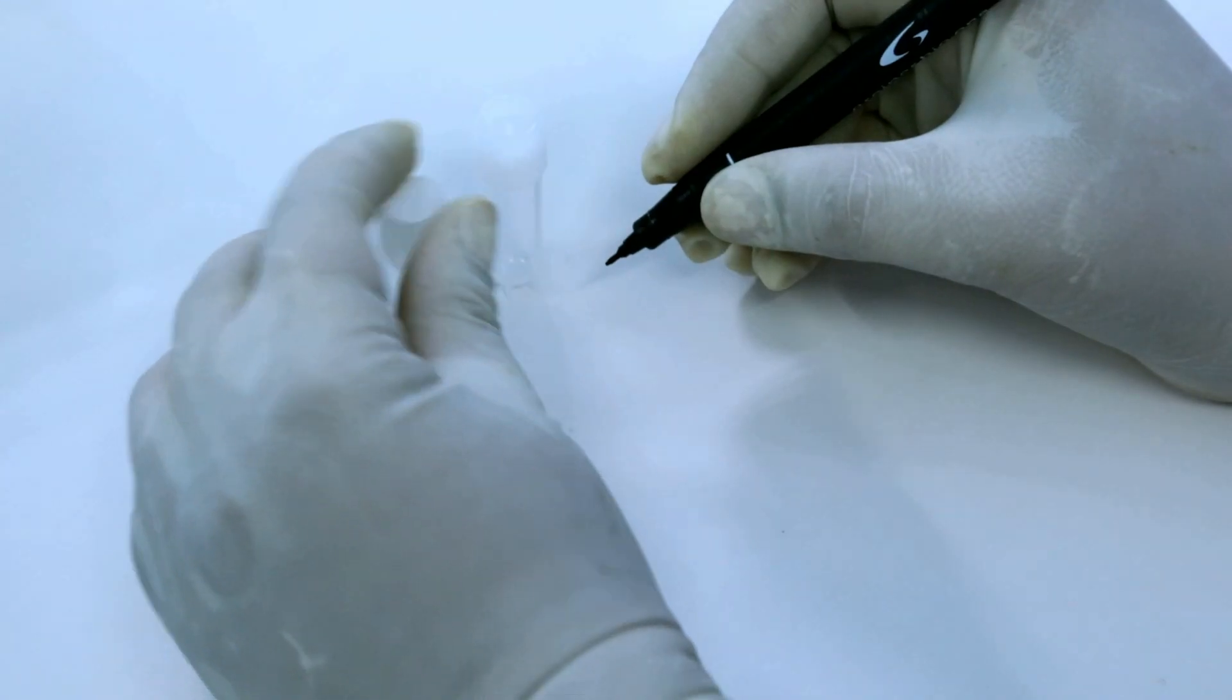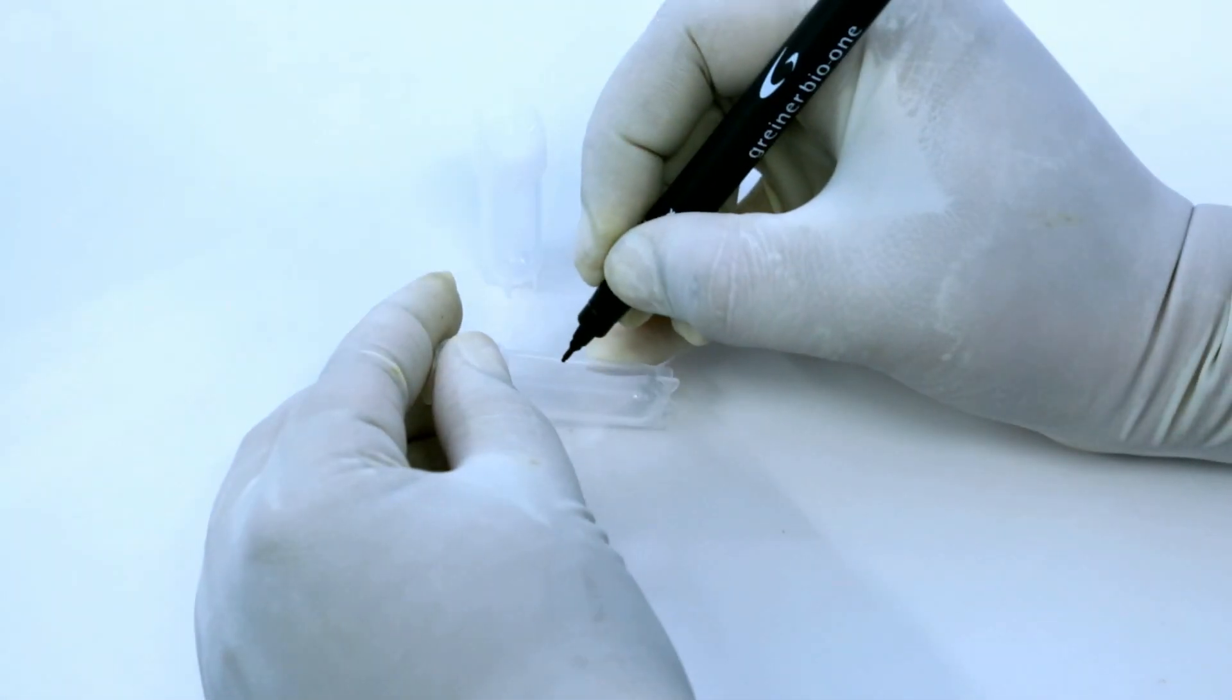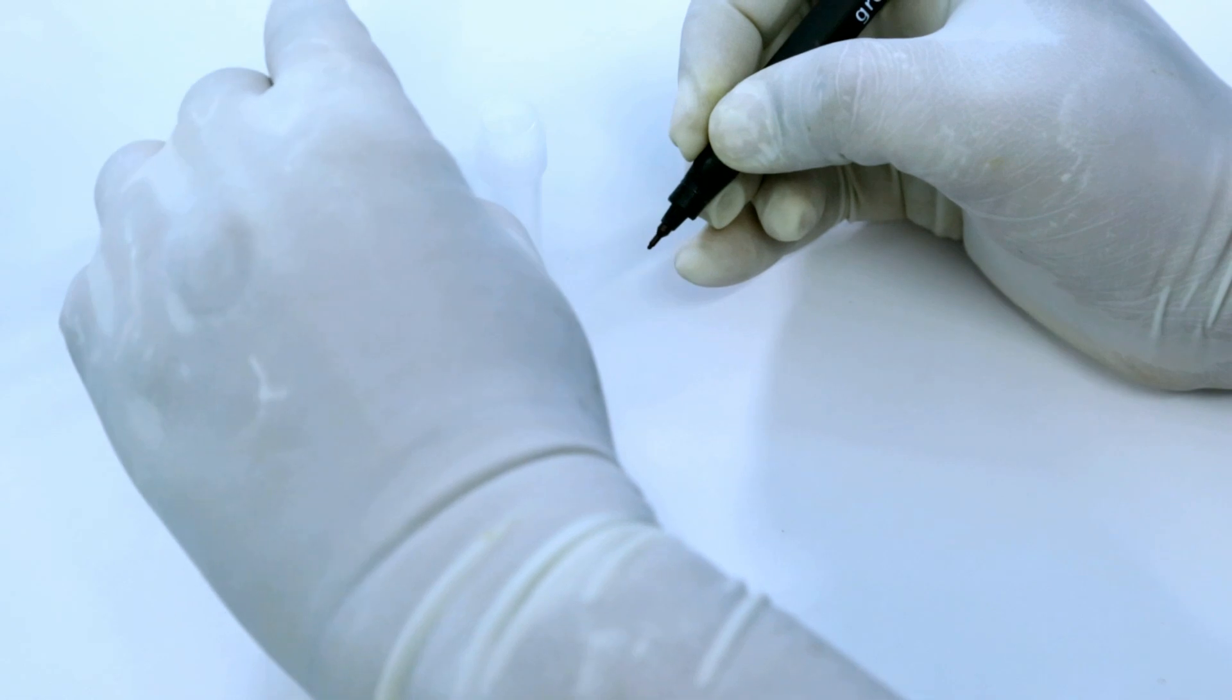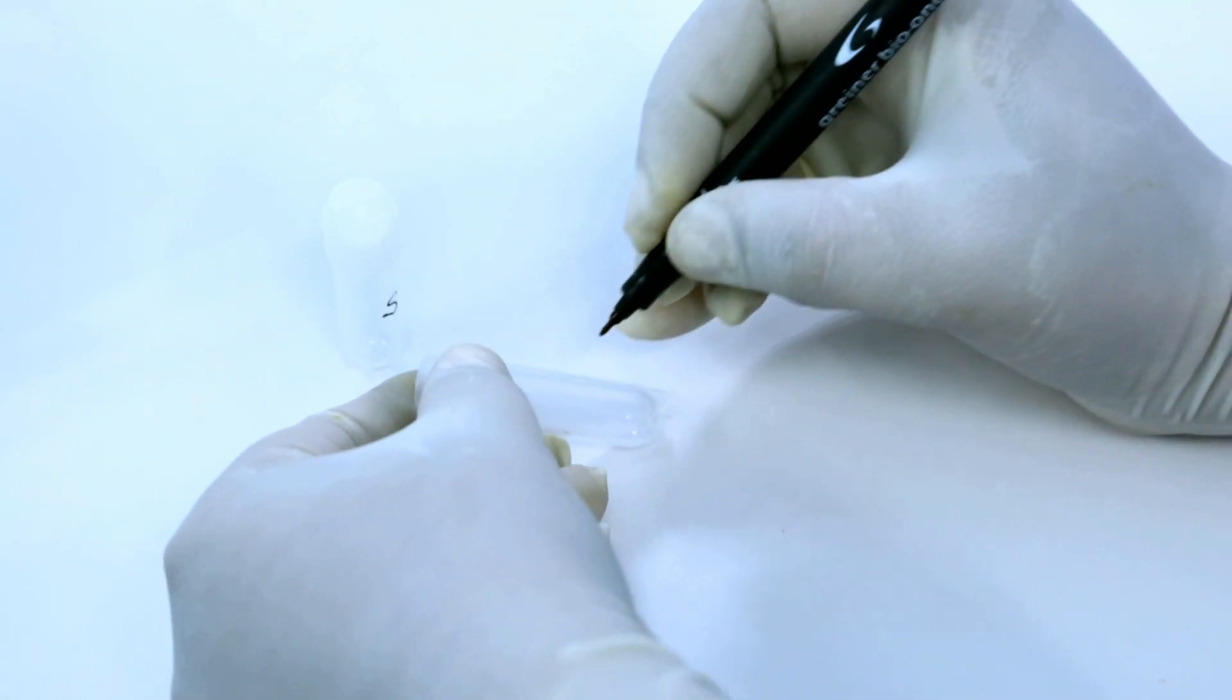Bring all the reagents to room temperature. Take two centrifuge tubes and label as standard and test with patient ID.